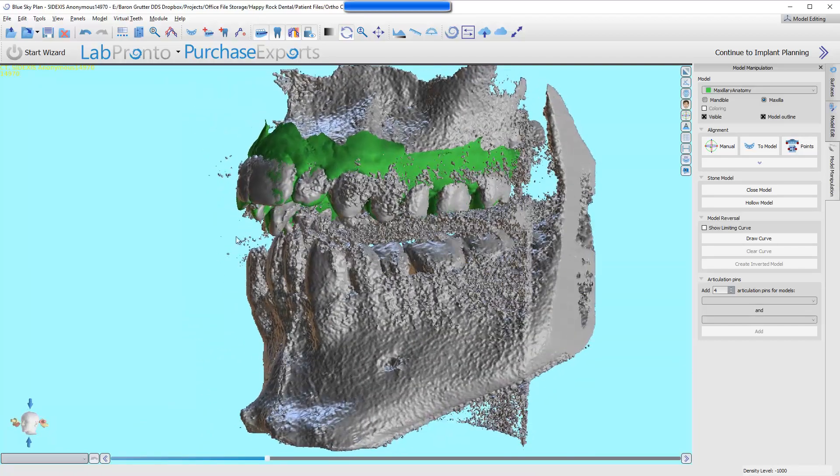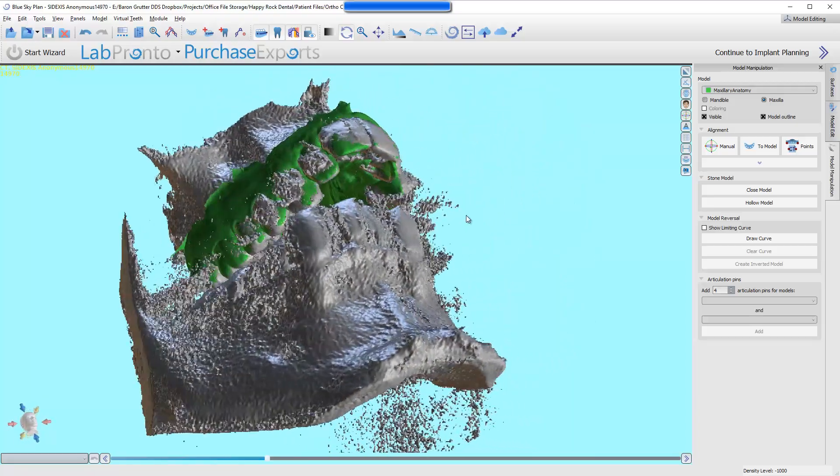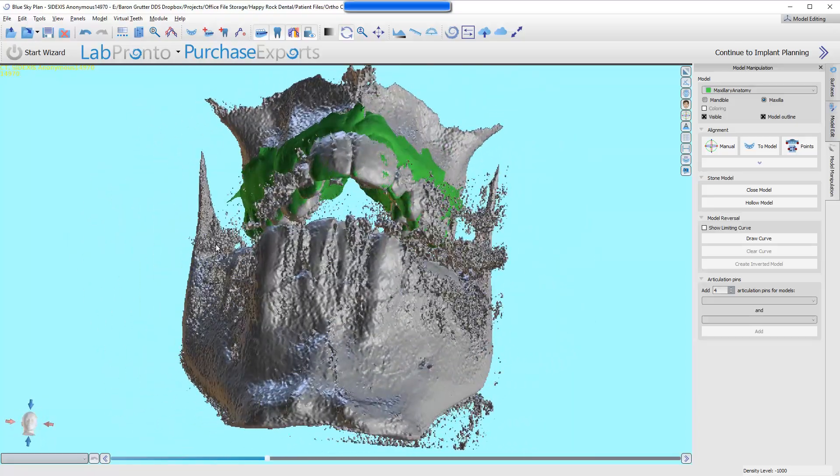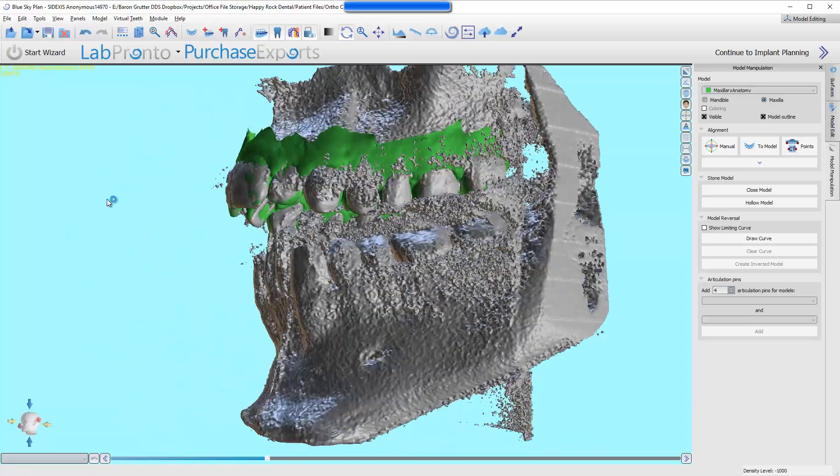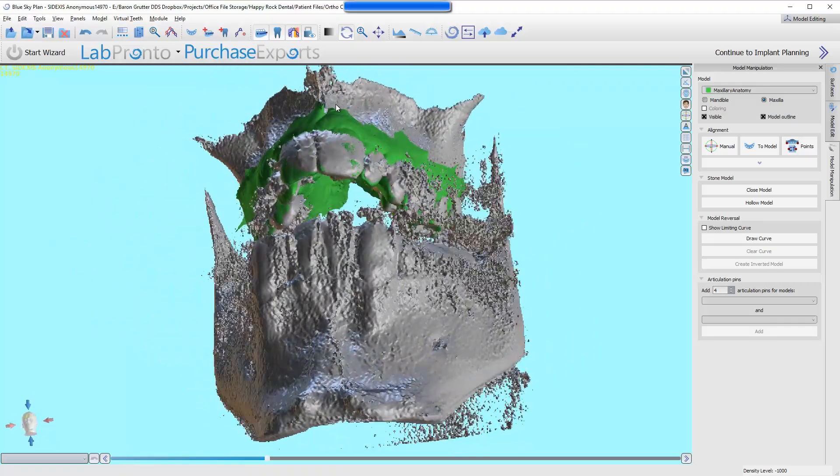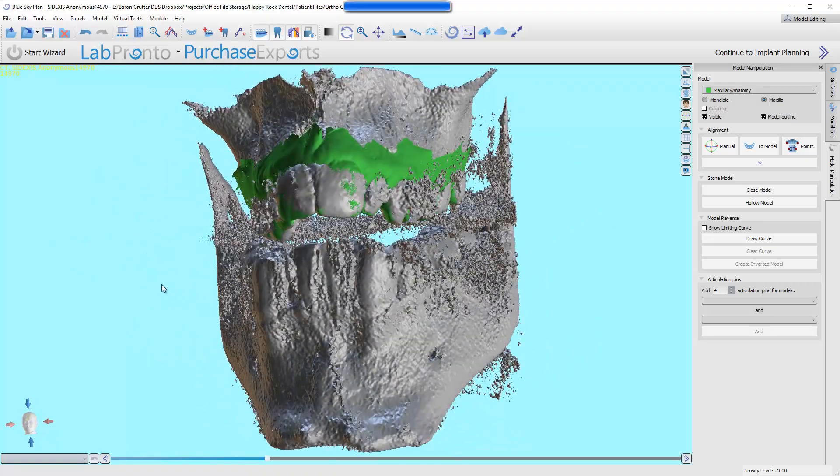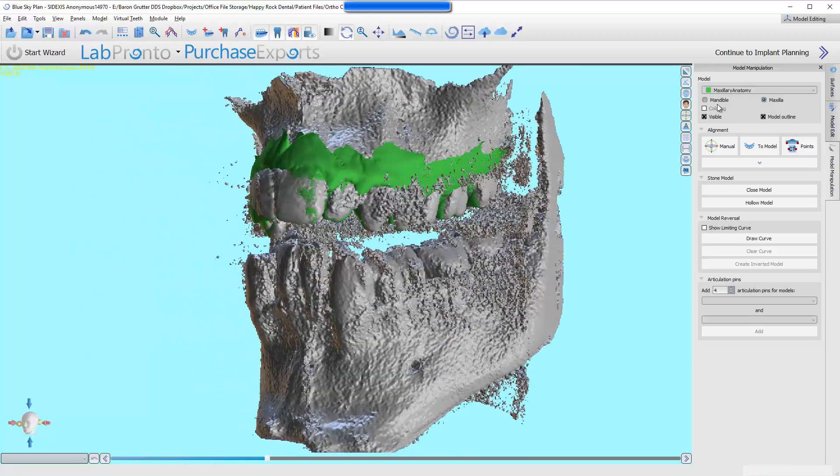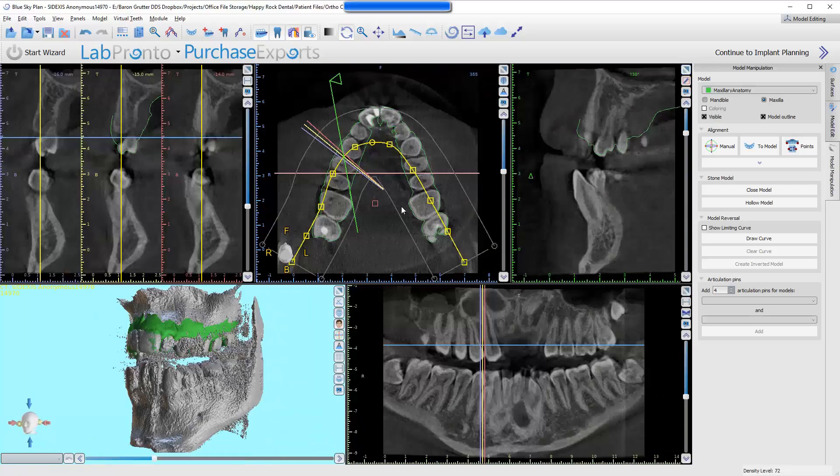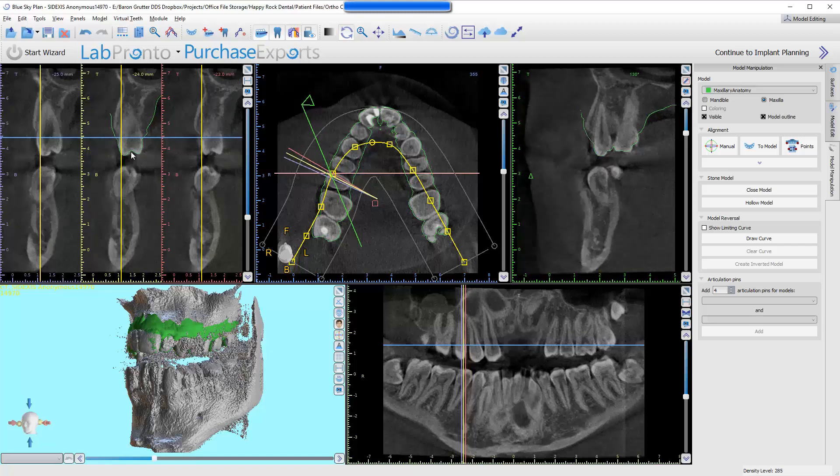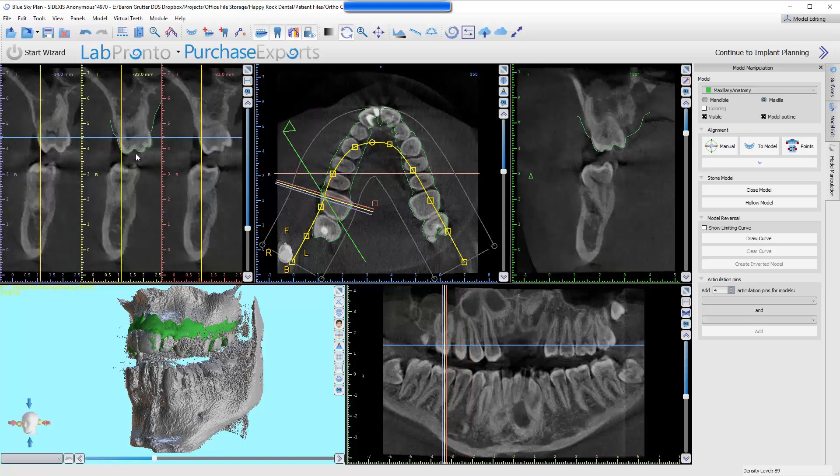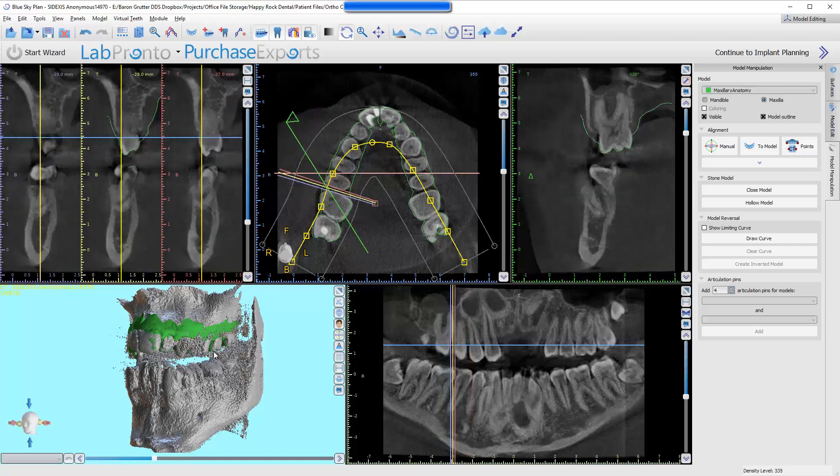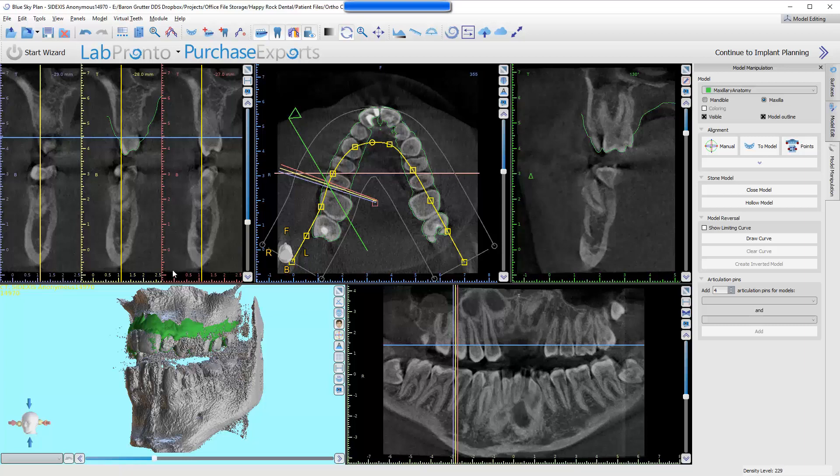Don't use this 3D view. Because if you look in this view, you might think it's not aligned. It looks more green on this side, a little gray there. Is it perfect? No, but honestly, this will actually throw you off, especially if the patient has any restorations, metal restorations in particular. So trust this outline. This outline will be much more true than this 3D view. But once I know that it's aligned, I'm good to go. I can start planning.